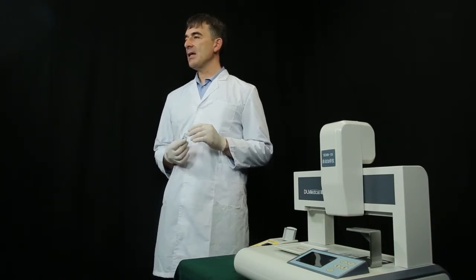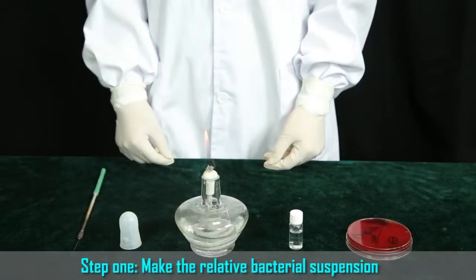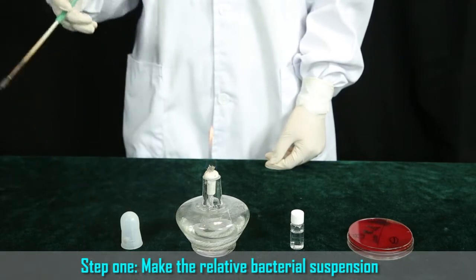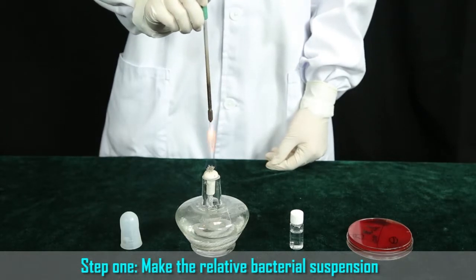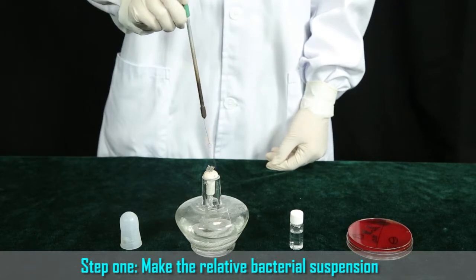Take DL96E for example. 1. DL96E manual way. Step 1. Make the relative bacterial suspension. A. Light the alcohol lamp. Hold the inoculating loop in the right hand. The inoculating loop needs to be fired till red. When you inoculate, any part should be burned before inserting into the bottle.